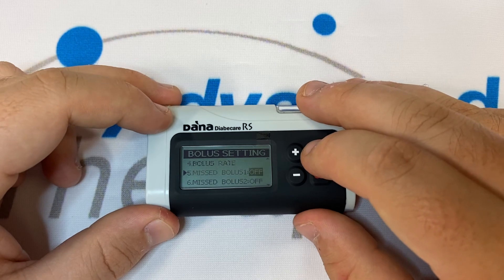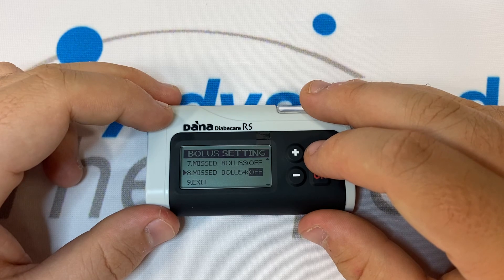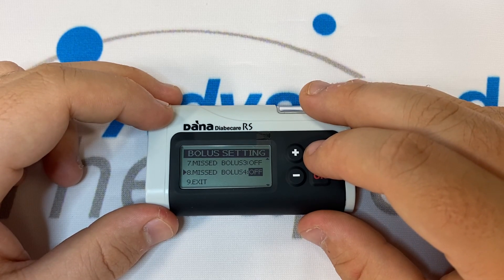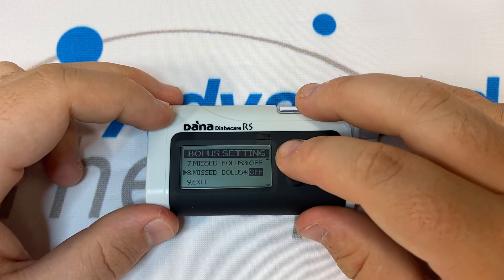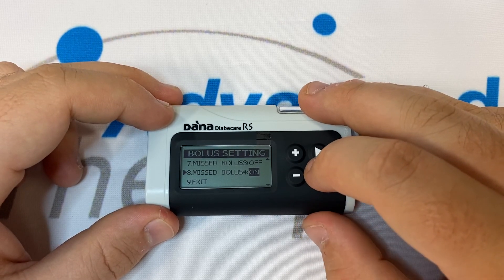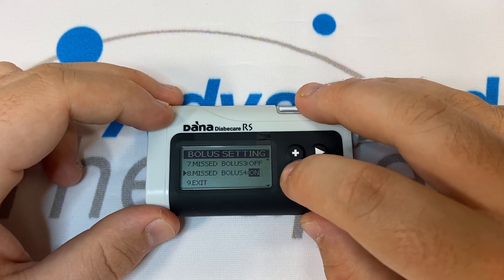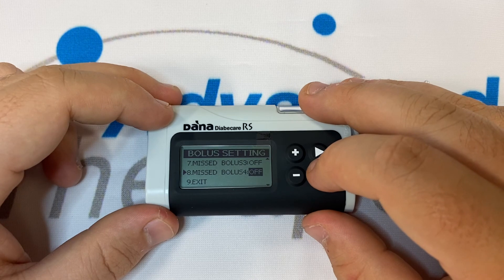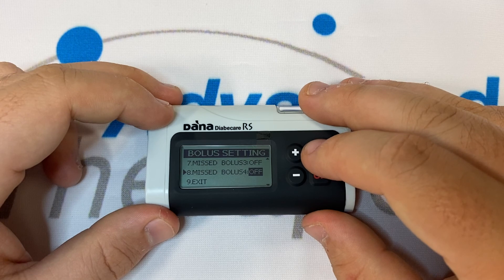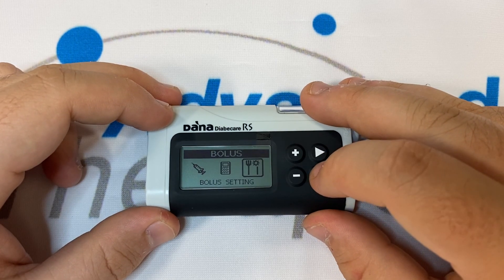Options 5, 6, 7 and 8 are all missed bolus alerts. These missed boluses are tied to the ratio time slots mentioned earlier. Missed bolus 4, if switched on, will alarm to tell you if you have not completed a bolus between the 11pm and 6am time slot. If you wish for missed bolus alerts, it may be best to program them on the phone app where you'll get much more flexibility. Press 9 to exit and save your changes.